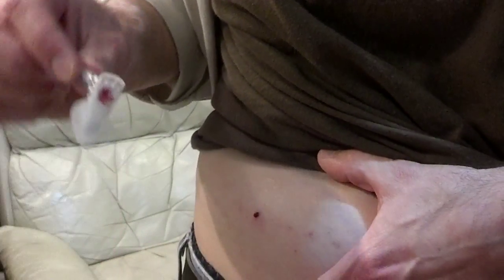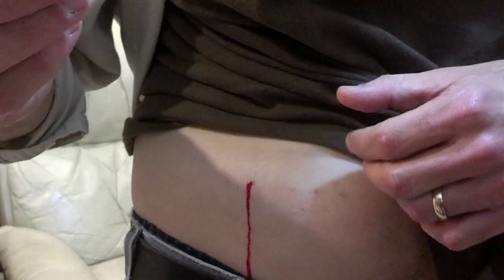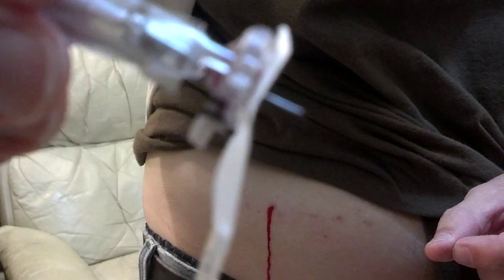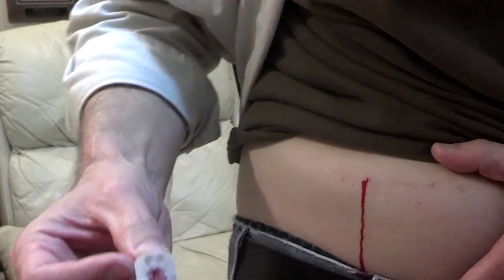Well, that's some good tape you've got there, MiniMed — this is hurting like a son of a... Okay. You can see the evidence of the bleeding; that was probably more self-inflicted than anything. I don't know if there's anything here that will shed any light on the problem, but I'm certainly going to be boxing this up and sending it back to you guys. Hopefully somebody at MiniMed will be in touch with me and can tell me what the problem was, because this is terribly uncomfortable. I only had 10 of them to start with and I've had this problem on roughly half of them. This is Neil Moncrief in Leesburg, Georgia — I've got a gusher going here.